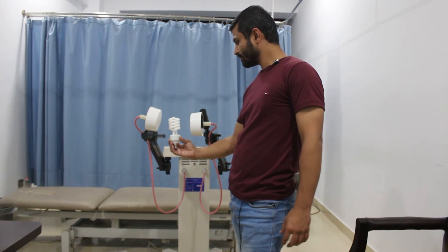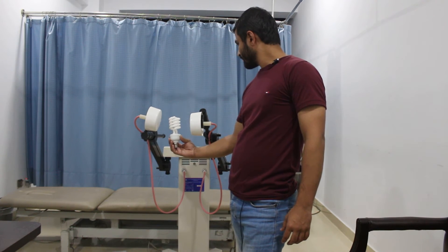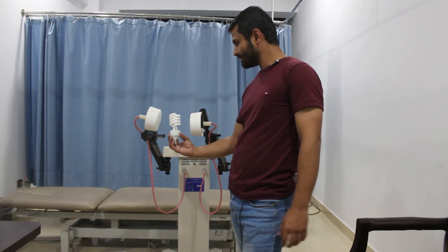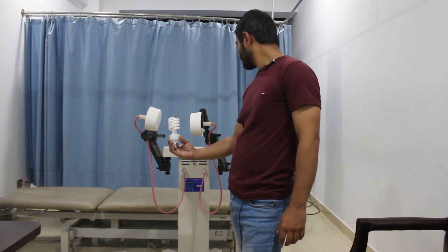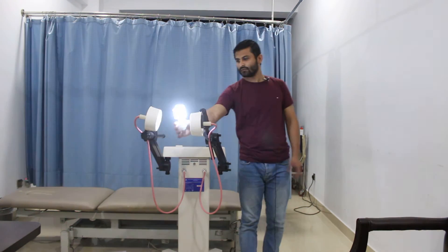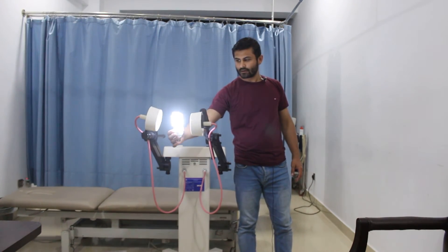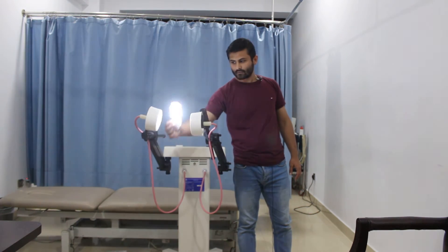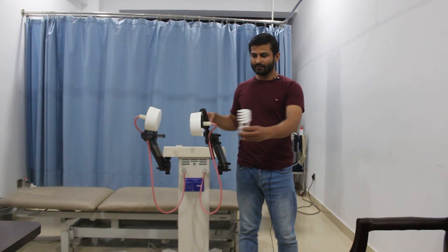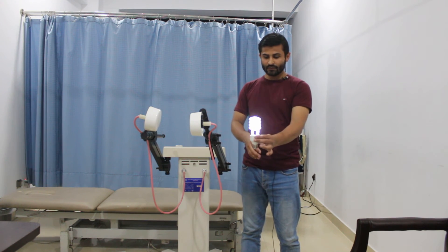It will take some time to glow. When the output commences it will light this bulb. We need to check whether it is still tuning or actually delivering treatment. And here you can see that it is turning on — it's very clear that this is the region where the electromagnetic field is present.